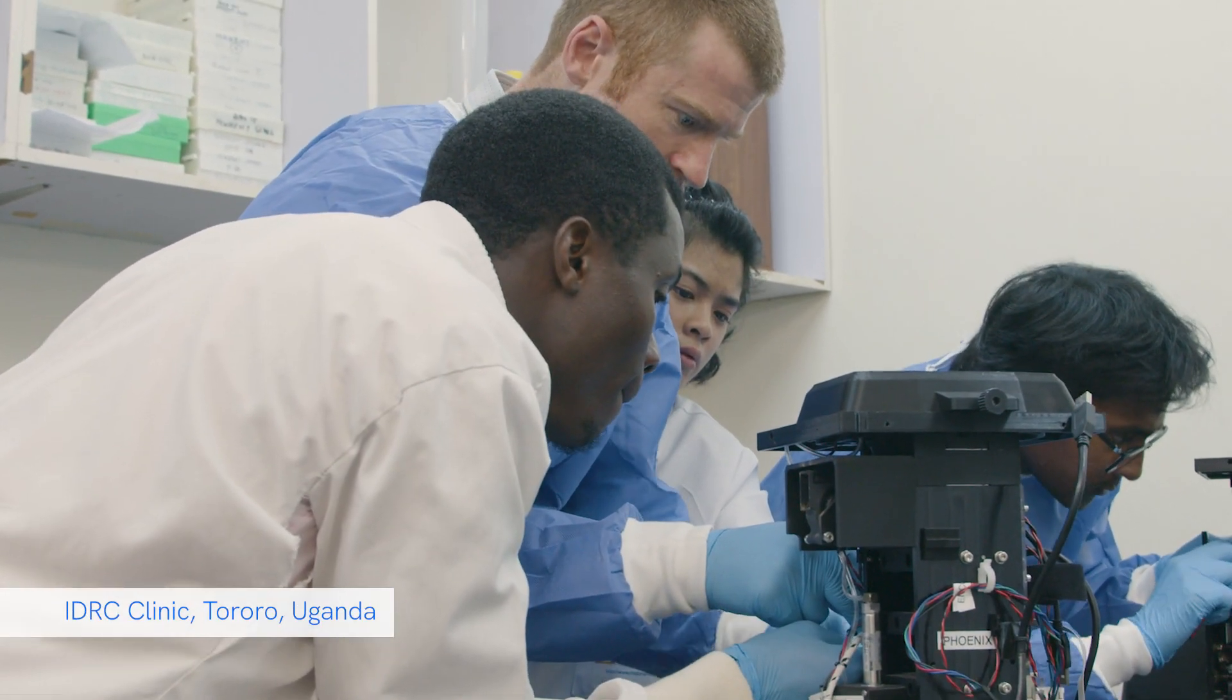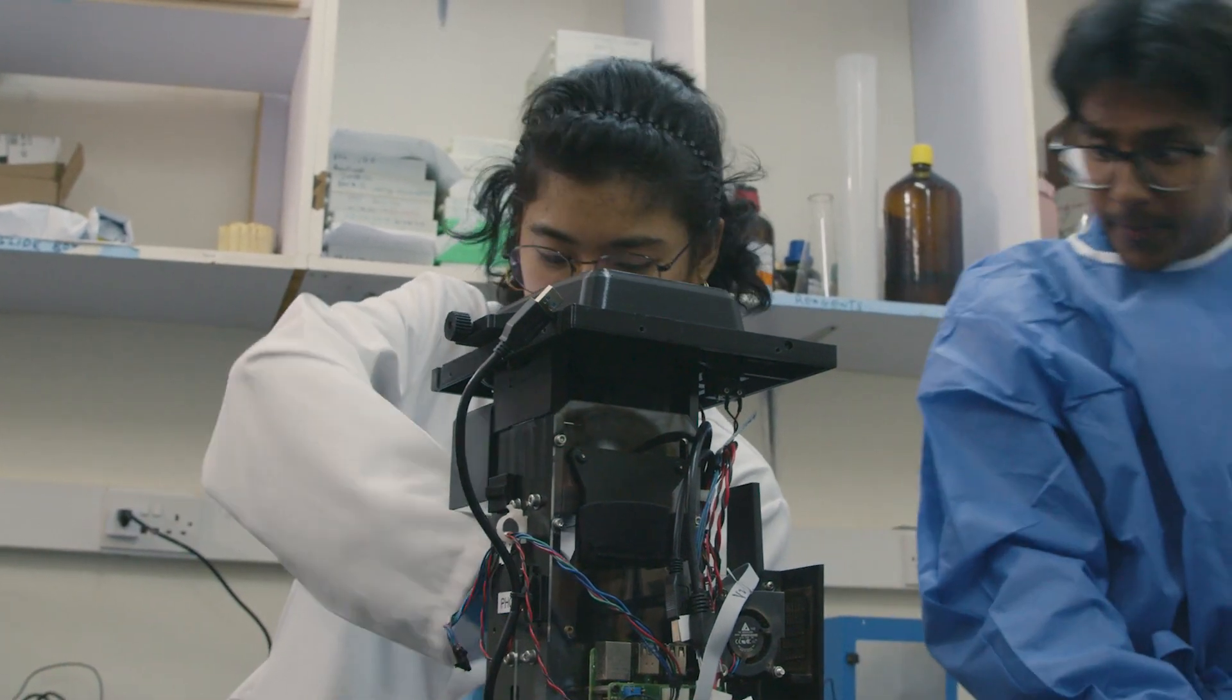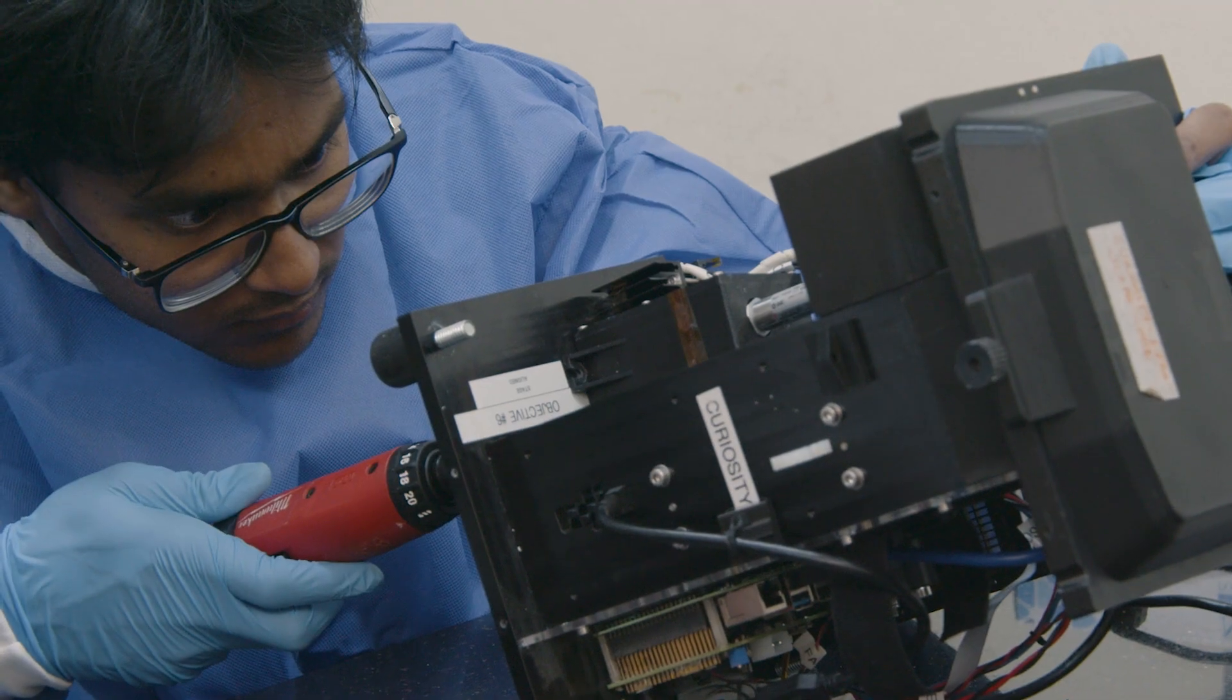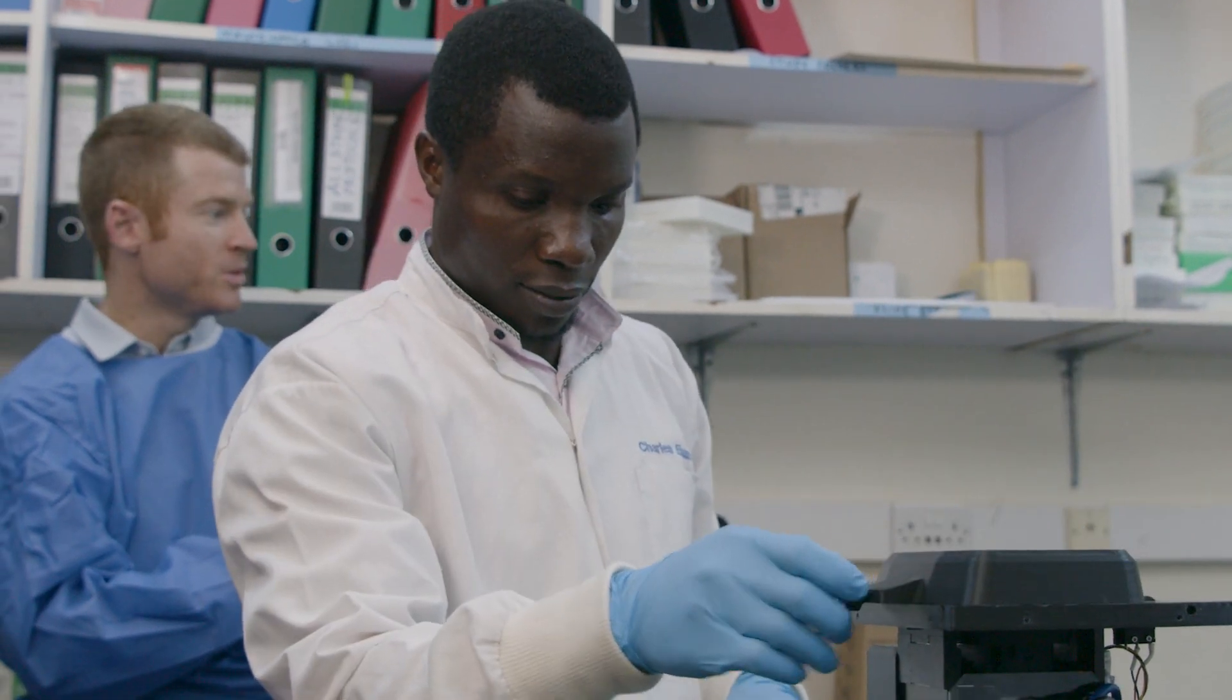In 2022, we shipped these microscopes here, but there were a lot of problems that had to be solved. In fact, when we first submitted the research paper, some editors said there's no way this is applicable to the real world. But this team, they made it happen.